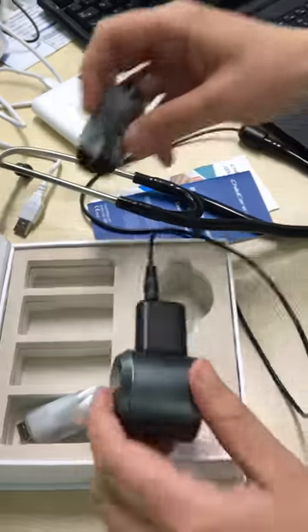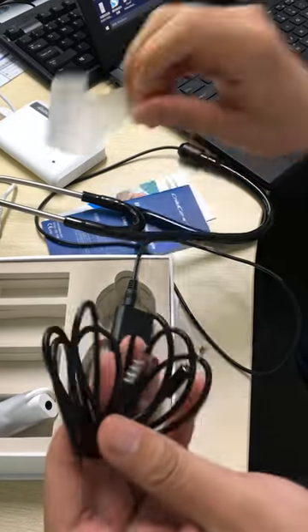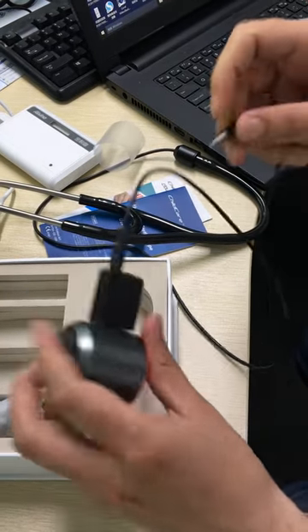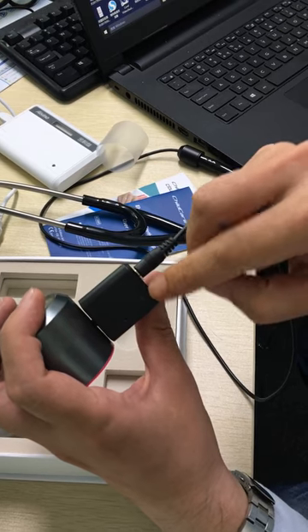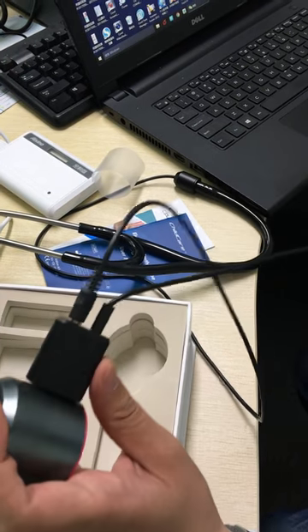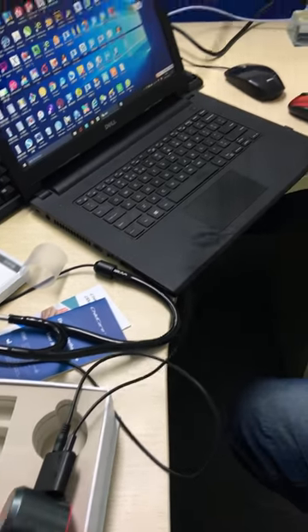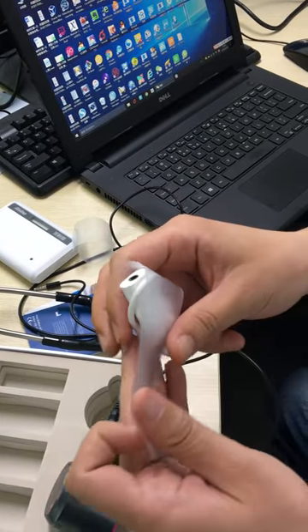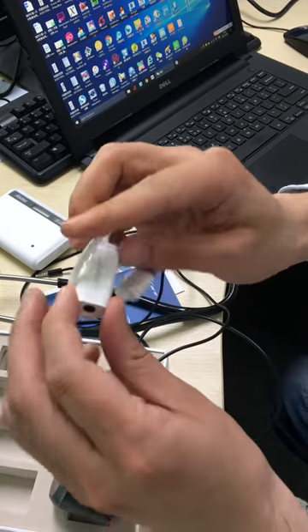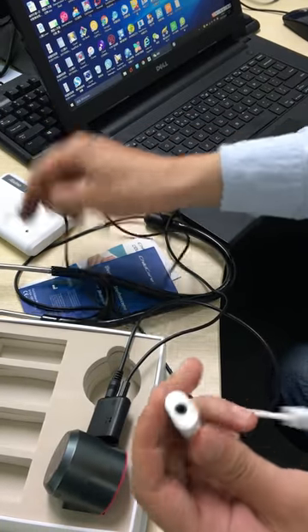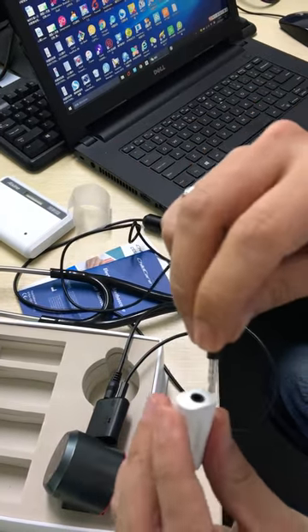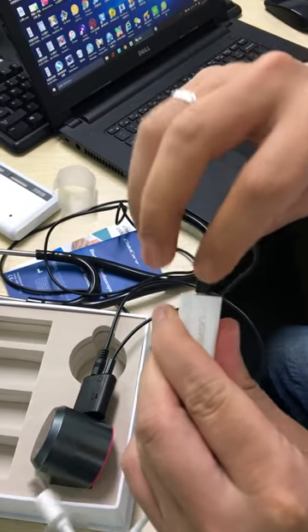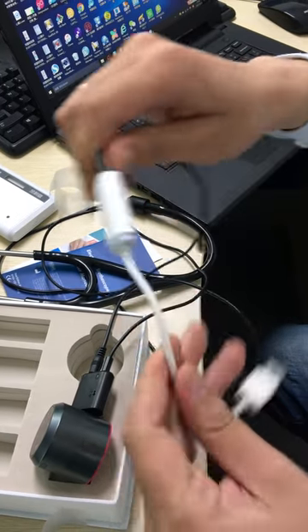Then, put the audio line into the phone icon. This is the audio adapter. You put the audio line into the jack. Pay attention to this, put it harder.